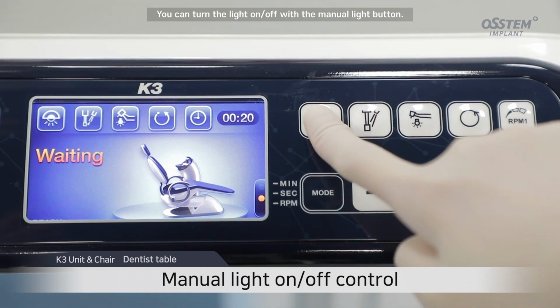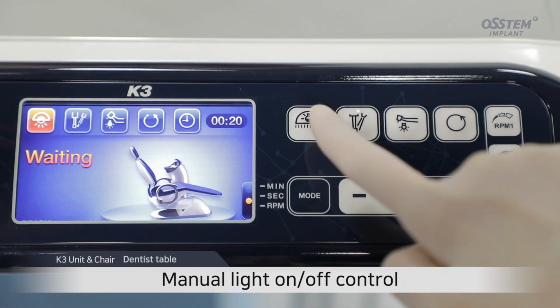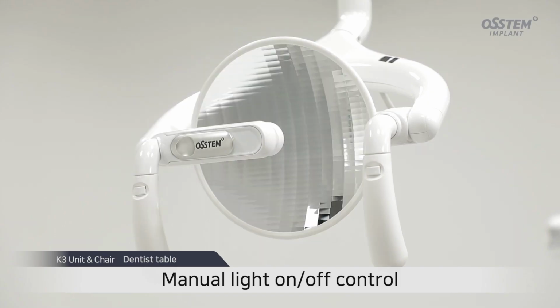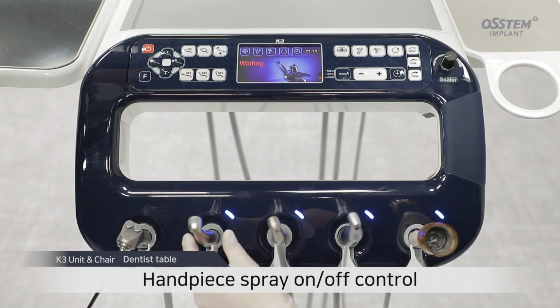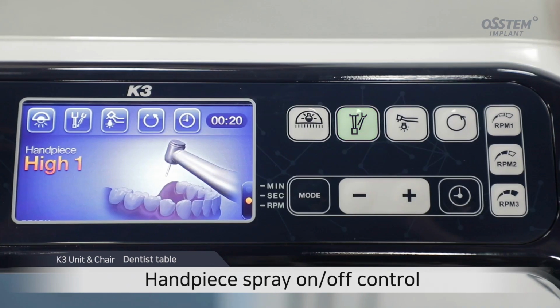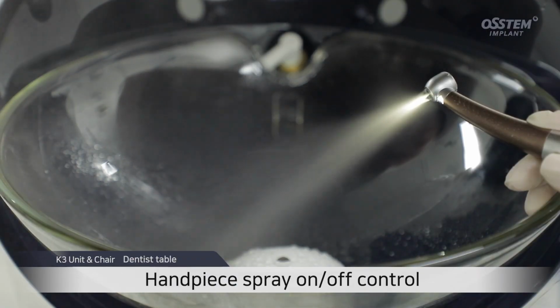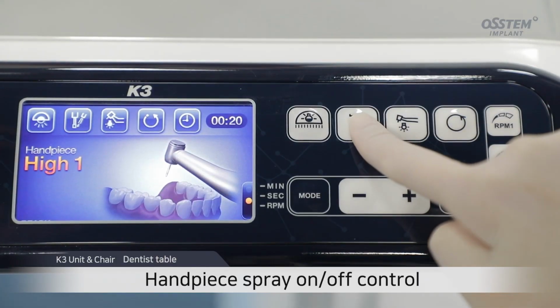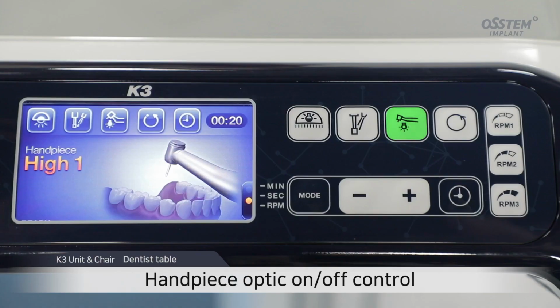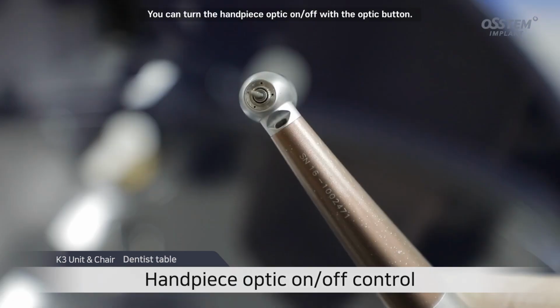You can turn the light on off with the manual light button. You can turn the handpiece spray on off with the spray button. You can turn the handpiece optic on off with the optic button.